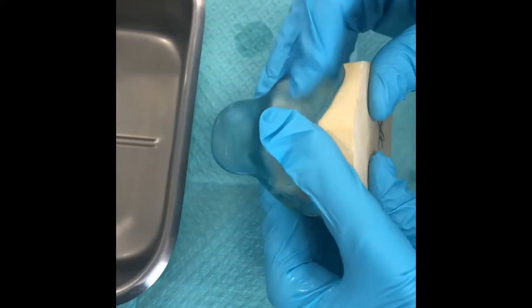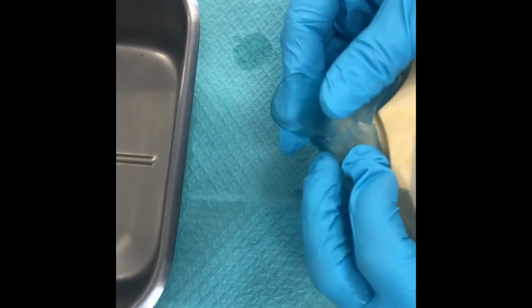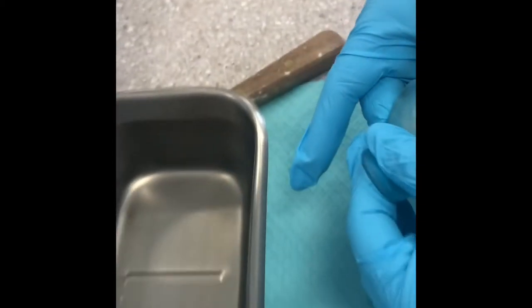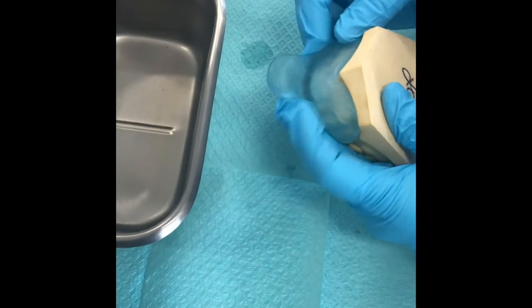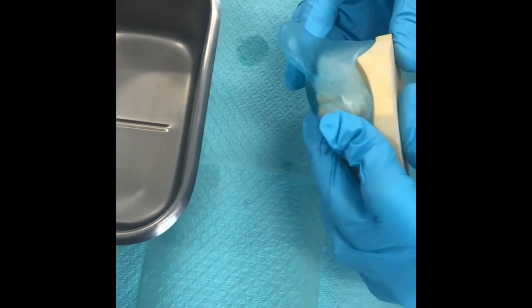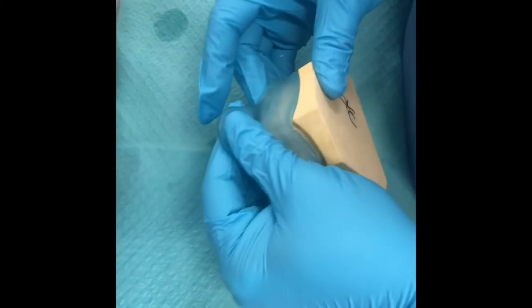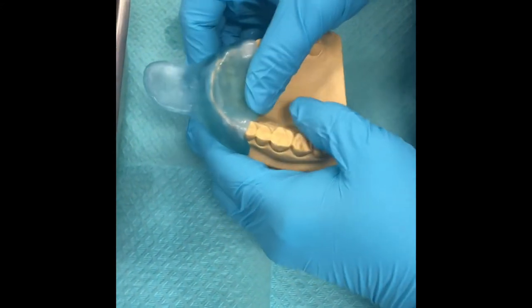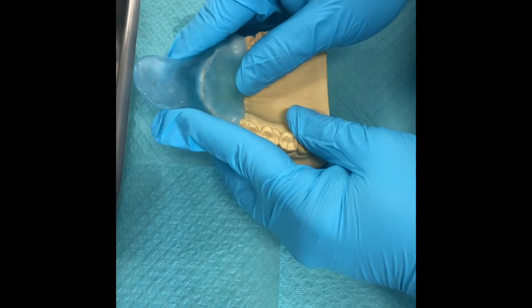The handle needs to be long enough to hang on to — not too short. You also want it to be flat with the occlusal plane. As it cools it will harden, so don't push too firmly against the teeth, or the tray will form around them and leave no space for impression material. Use light pressure when forming both the handle and the tray.